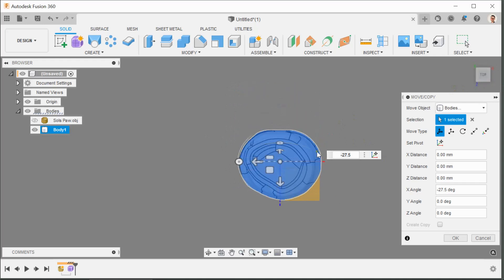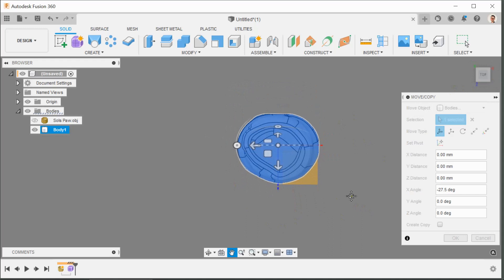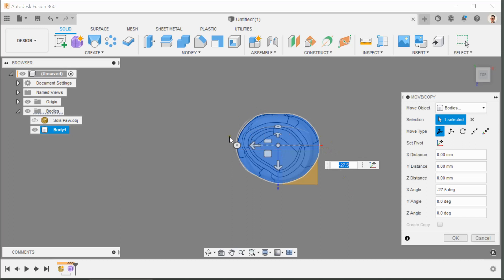And I'll see that it's twisted slightly. So what I'm looking for is the widest point on this. Now as I'm looking down from the top, the widest points are the tips of the condyles, the outer edges of the bell of the elbow. And now if I was to put a bolt through this elbow, that would form the axis of the hinge joint for the elbow.